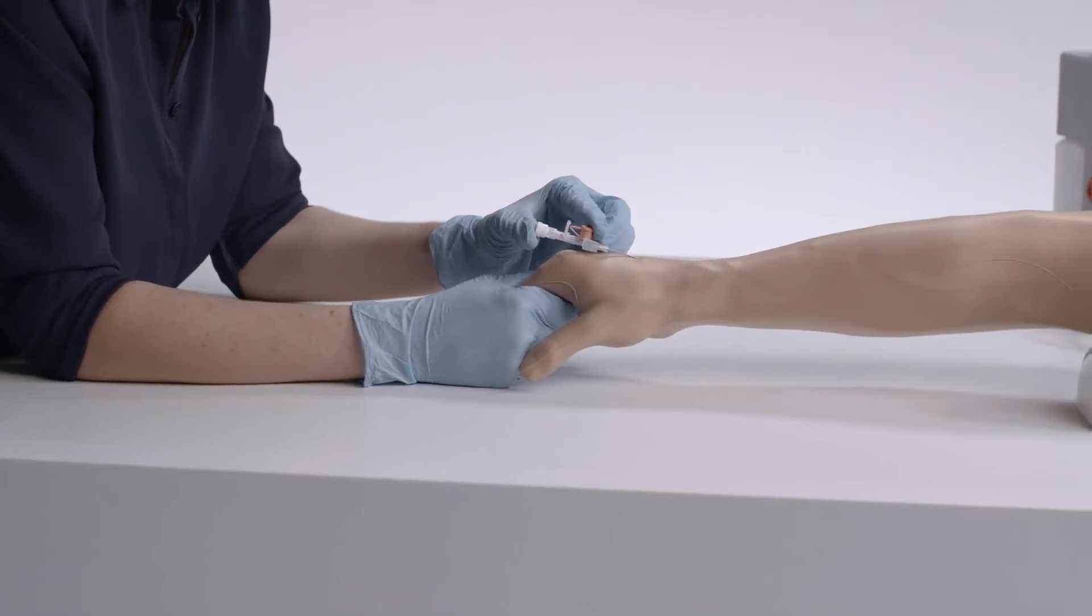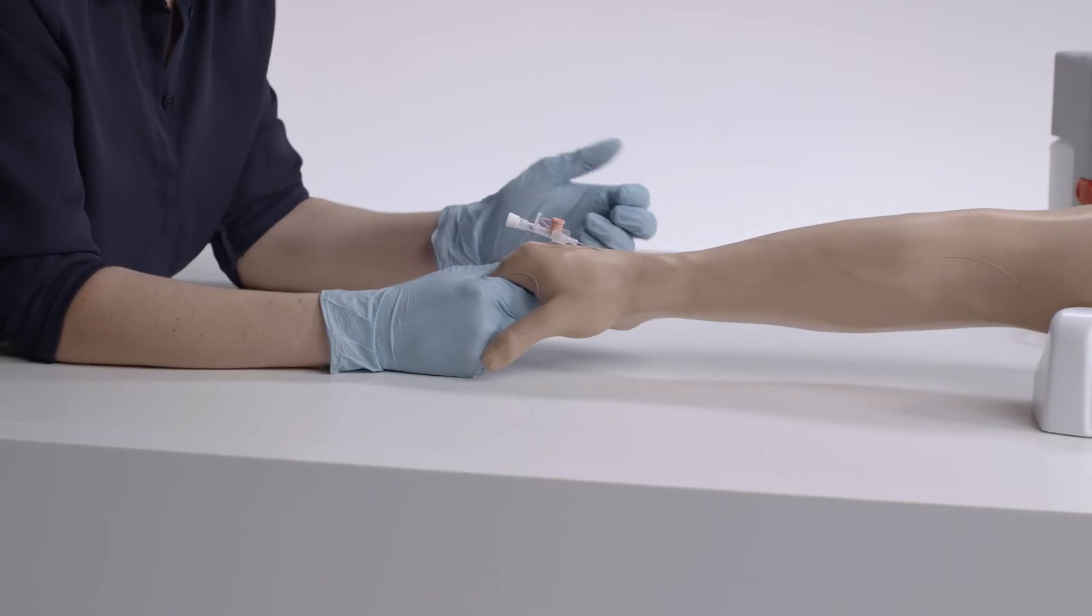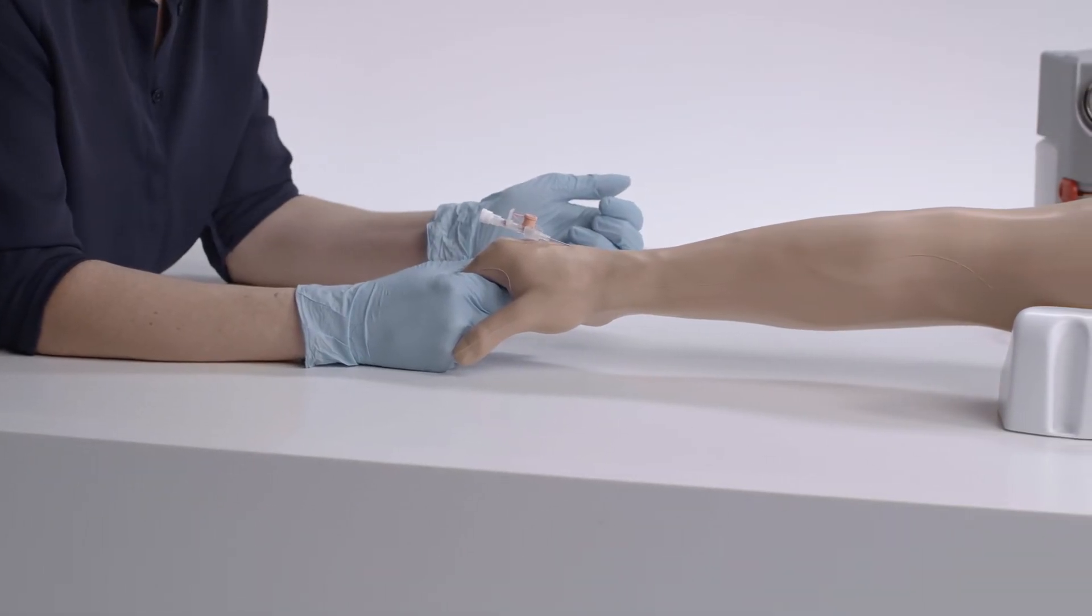Veins offer realistic flashback and digital pressure application to stem blood flow for practice in IV cannulation and infusion.